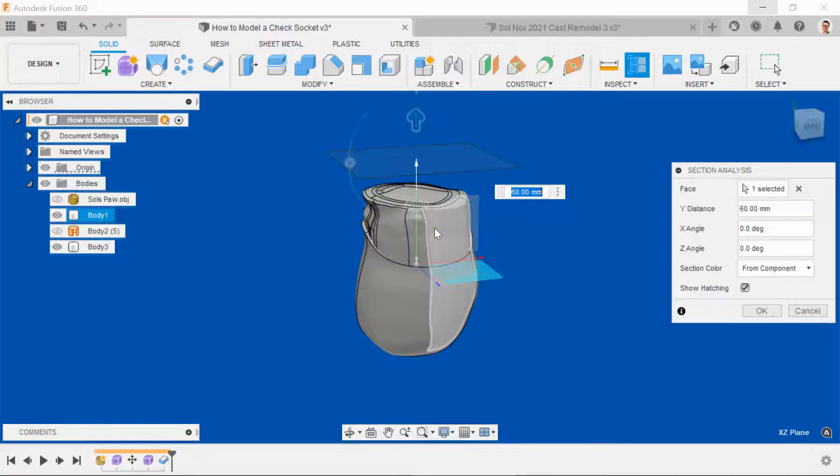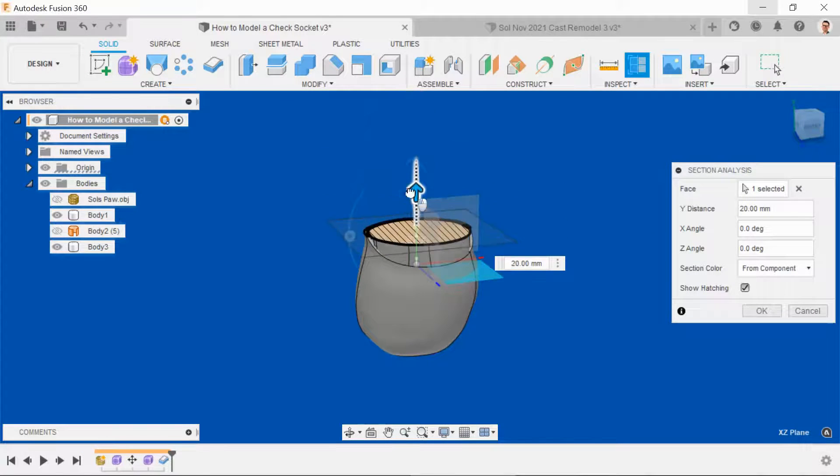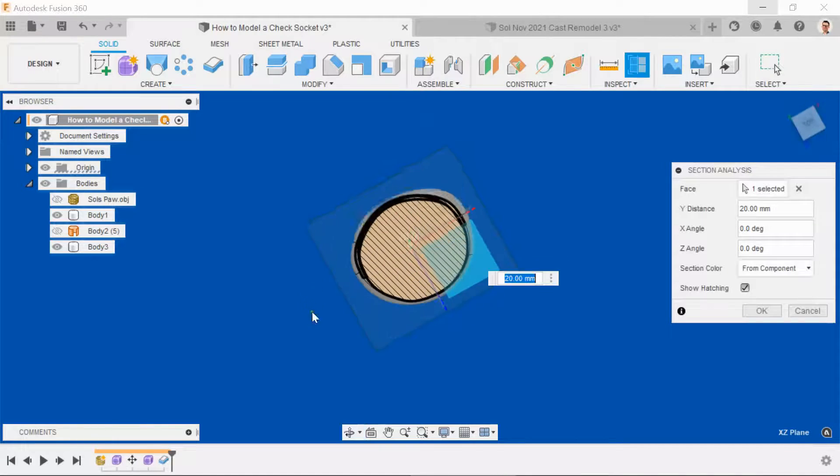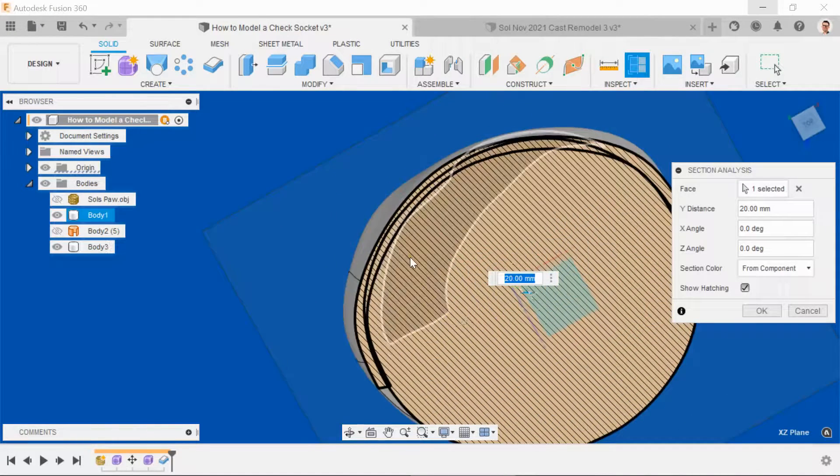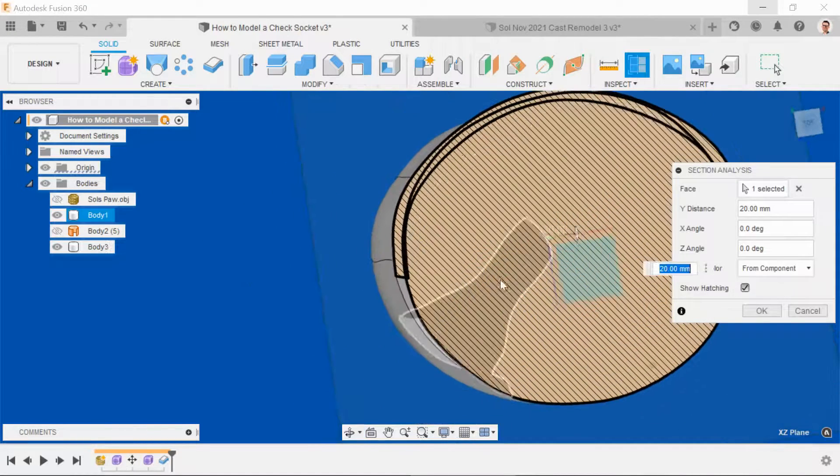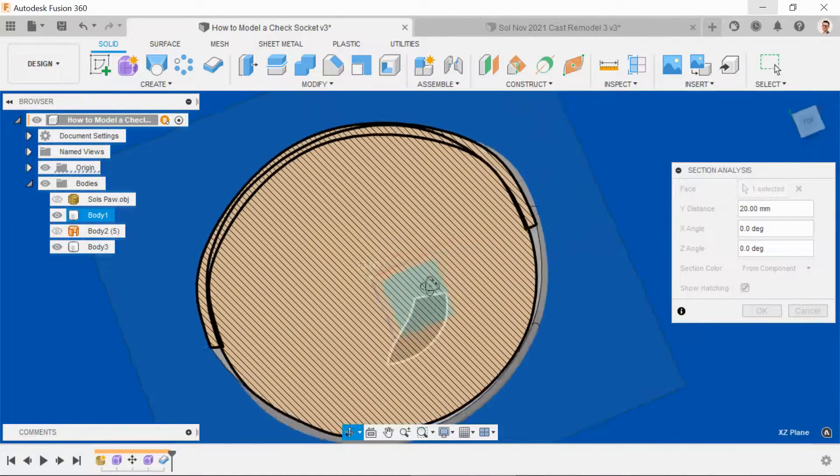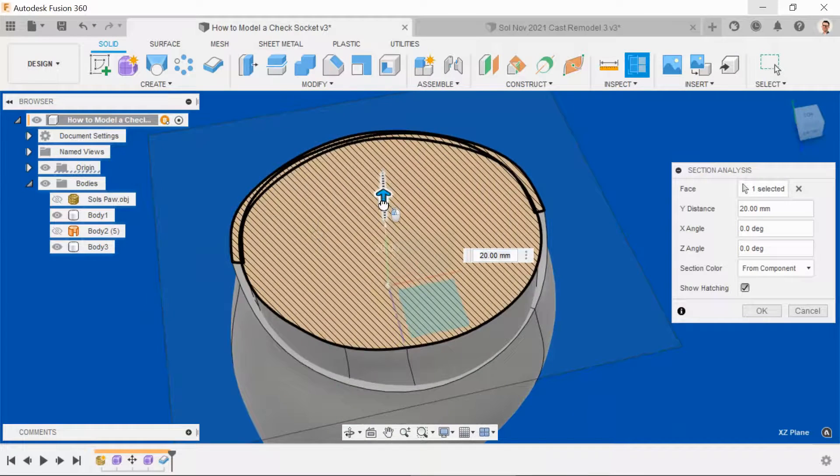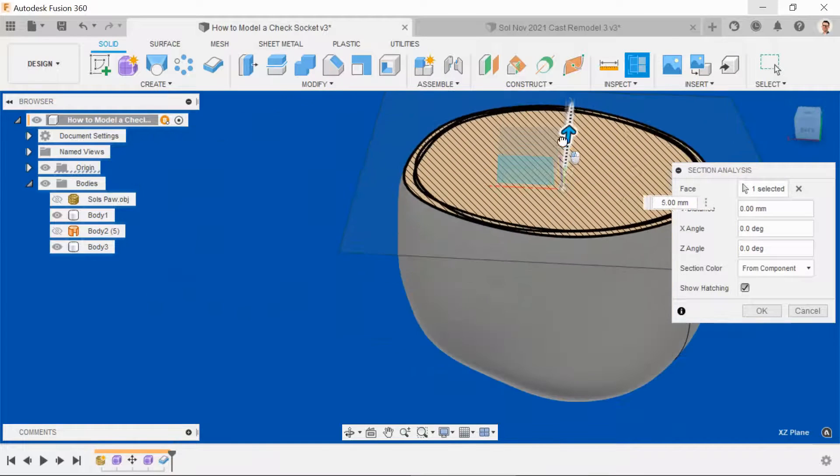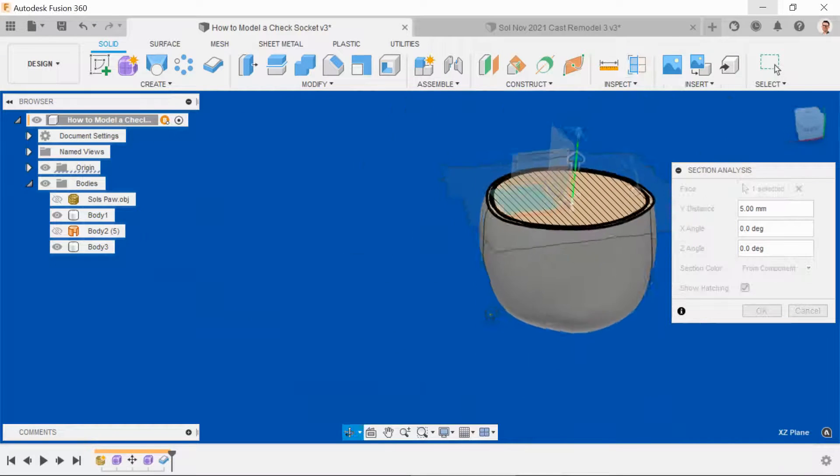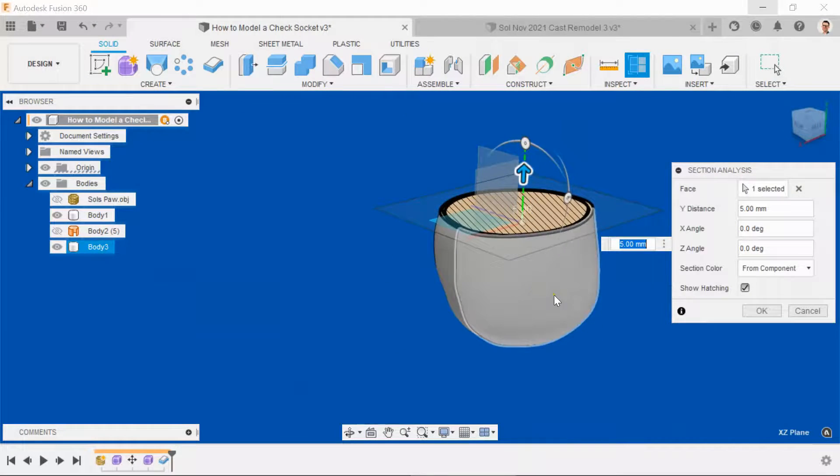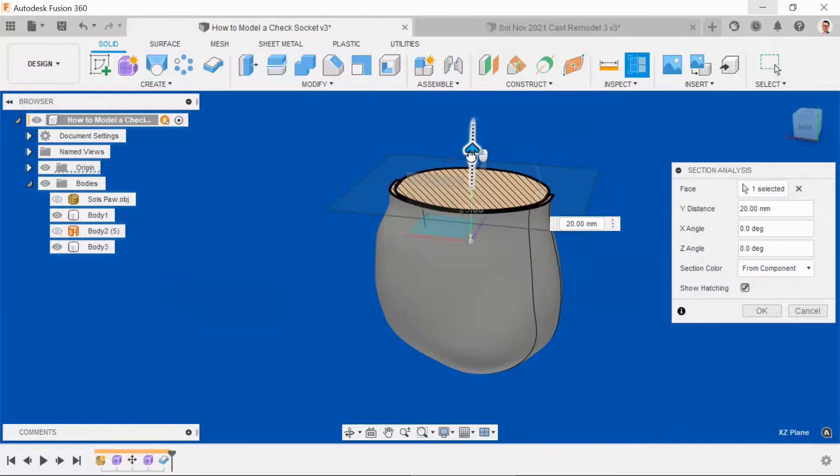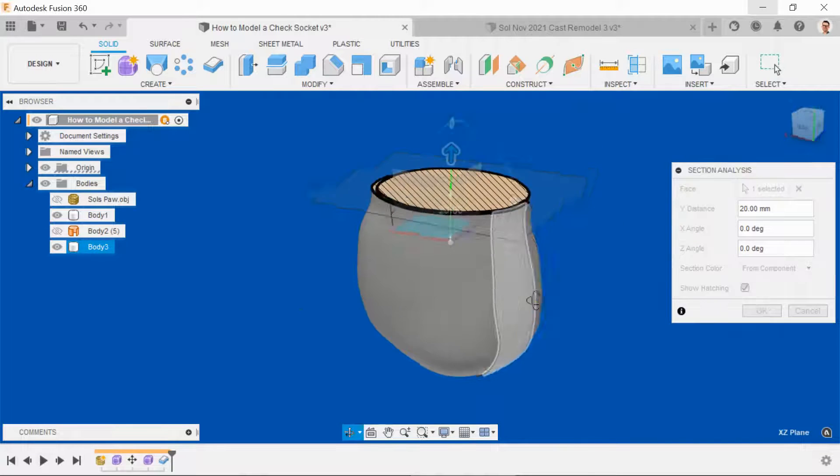Starting at the top of the model, slowly work down, trying to identify areas where there are overlaps or gaps. Near areas where there are bony prominences, such as the olecranon at the back and the condyles, it's vital that you've given enough room.